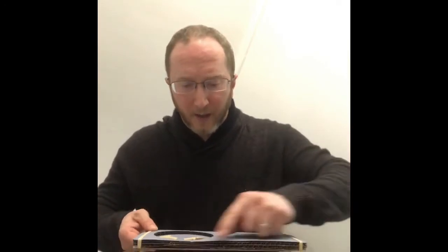I'd like to show you how it's done. Here is a version of the nine-hole peg test — this is actually a cardboard version created by Bart's MS in England, shout out to Gavin Giovannoni and the folks out there. This here is a container holding nine pegs, and then there's nine holes. This is put in front of the patient like this.